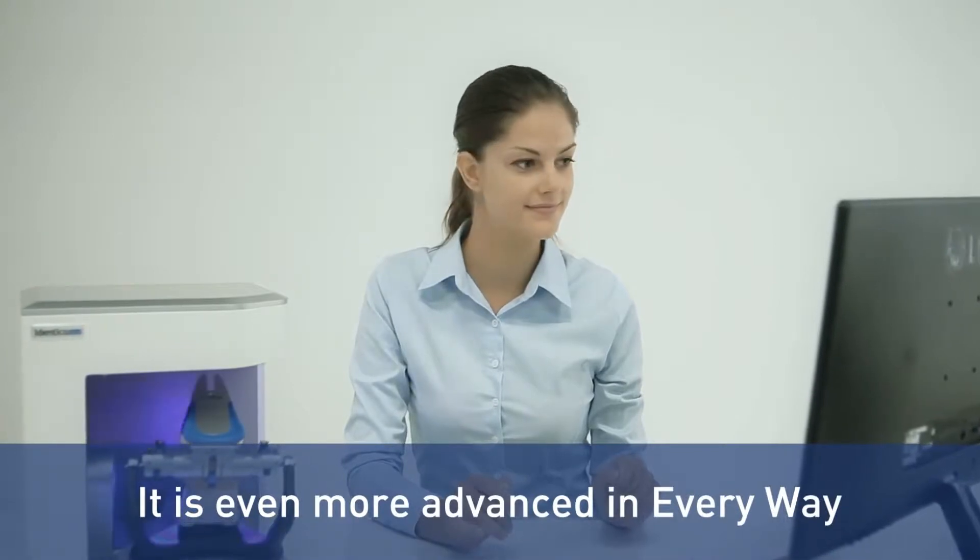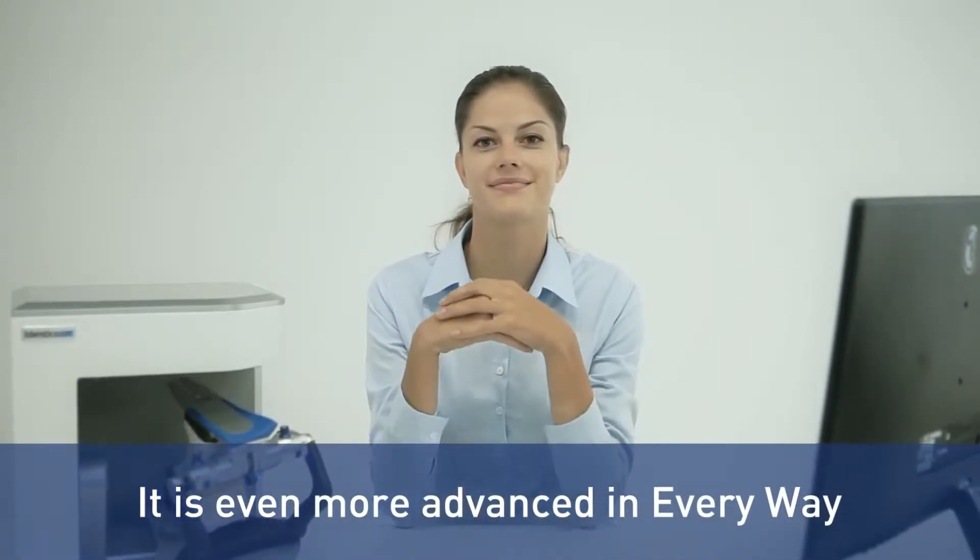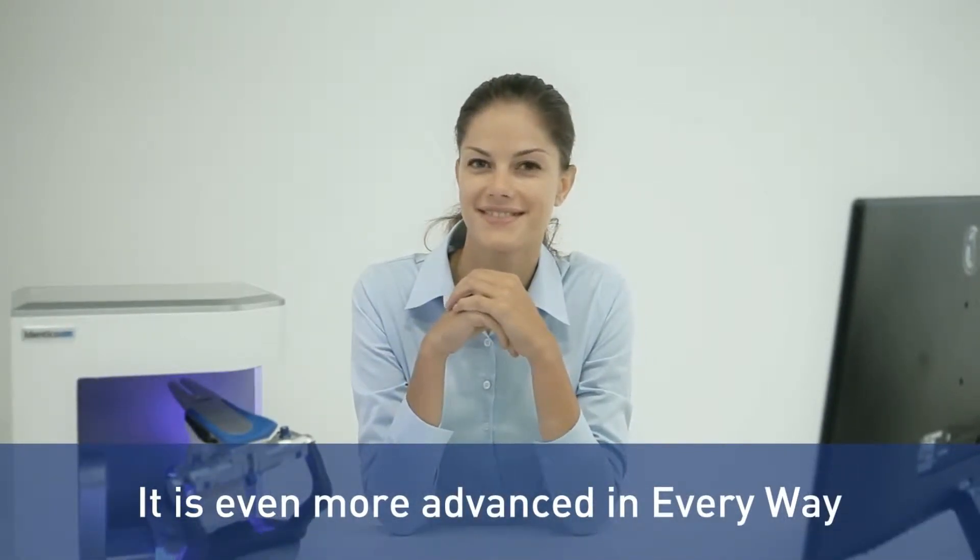Identica Blue is now more advanced than ever, serving the digital dental laboratories every CAD data need.